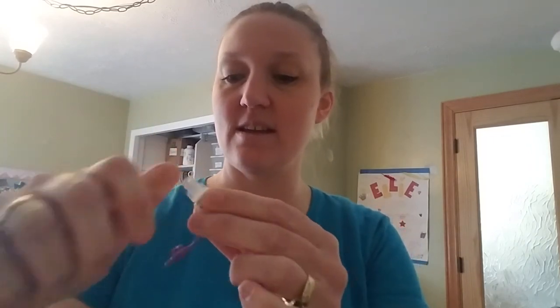So it looks like this. You remove the purple lid — I don't think you do anything with the purple lid, I think it just comes with it on. You can screw the little connector into the end of the ENFit extension, and then you can use any oral syringe like that, which you can get for free from your pharmacy.